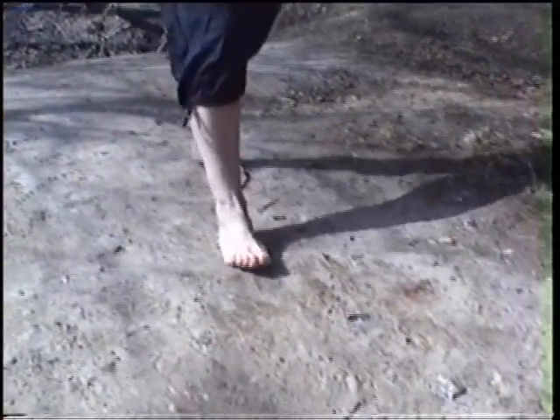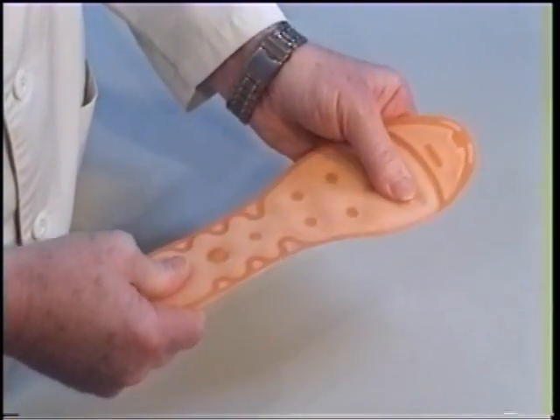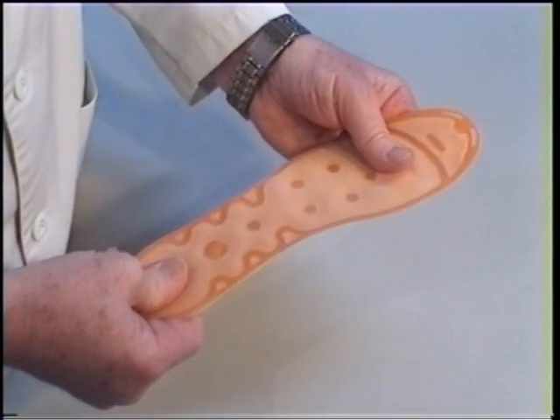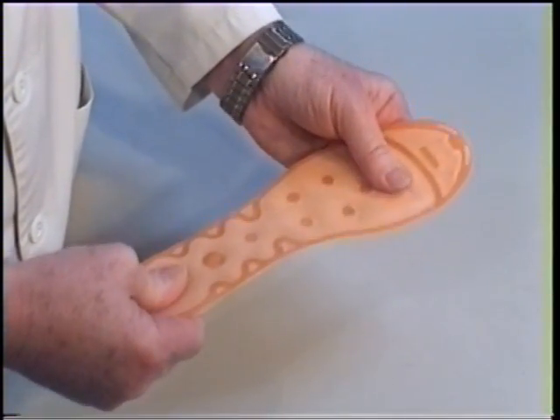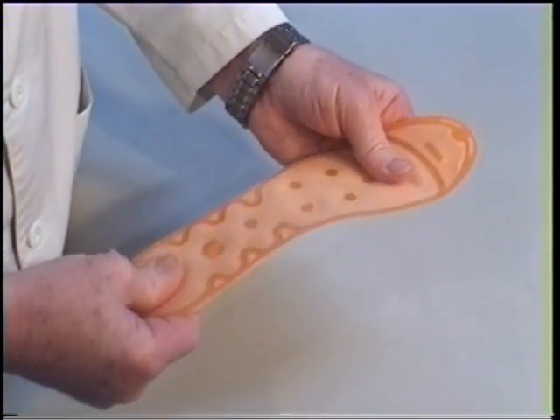In layman's terms, we transplant the natural movement of the foot's lengthwise tendon from the uneven surface to the inside of the shoe. Where the movement in nature is influenced by hard stones, the movement through the sensory water-filled massage soles will be perceived as a continuous and pleasant foot massage, which at the same time will be increasing the blood circulation.